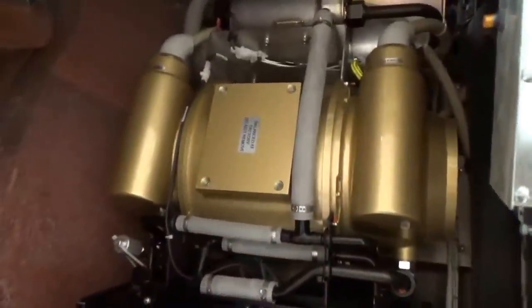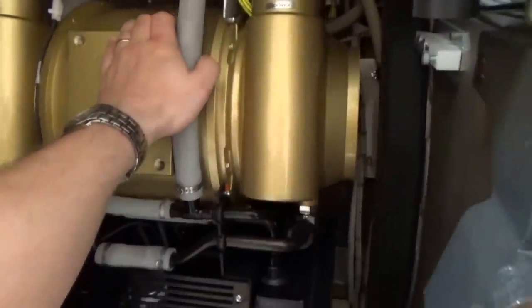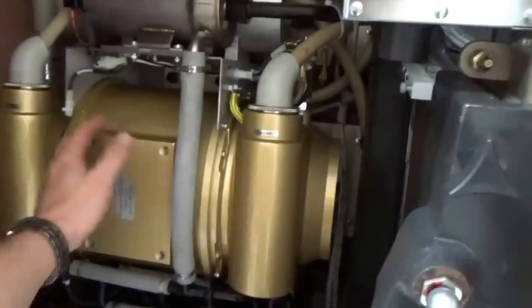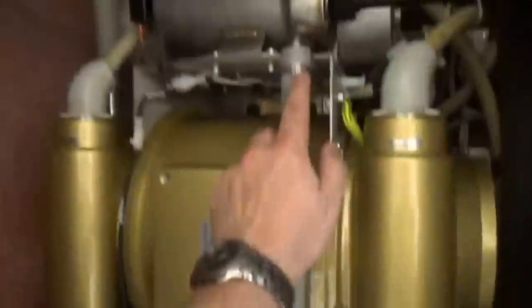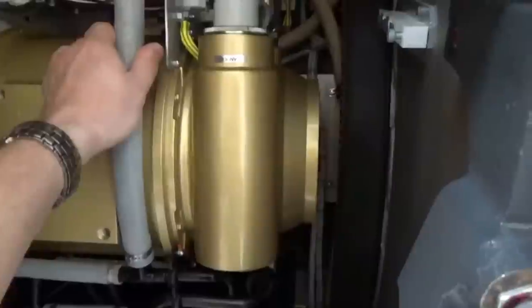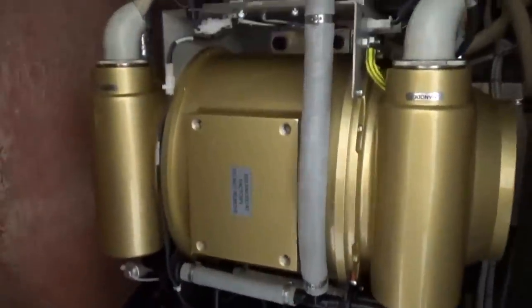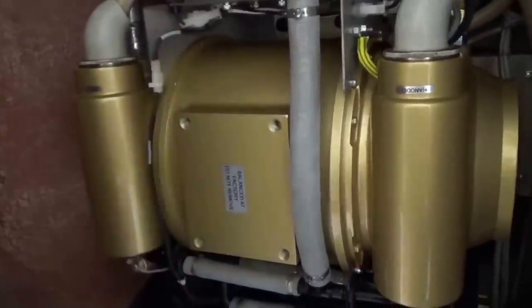What you're looking at right now is the x-ray tube itself. We did a little video on x-ray tubes a while back, but as you can see compared to my hand, this is a massive x-ray tube — it goes from here all the way up to here. This is the cooling system of the tube itself. There's a radiator, oil hoses, oil pump, and it actually pumps oil through the x-ray tube to cool it. These tubes get extraordinarily hot — the actual anode can get white hot when this thing is running under full load.